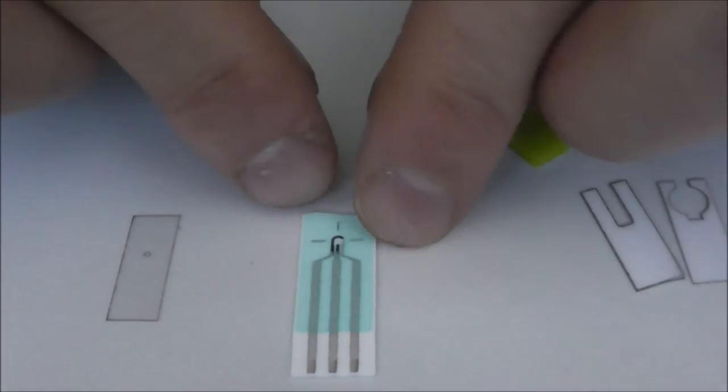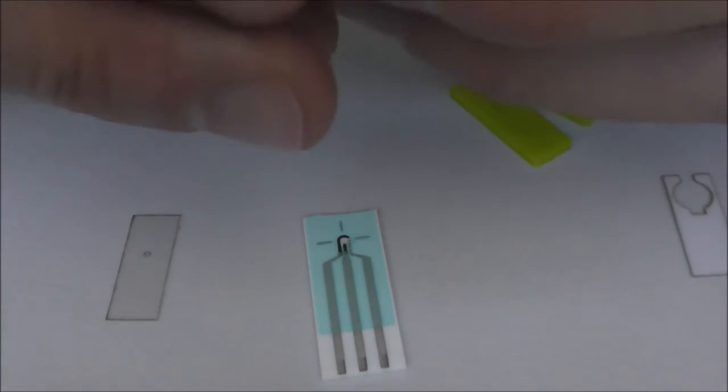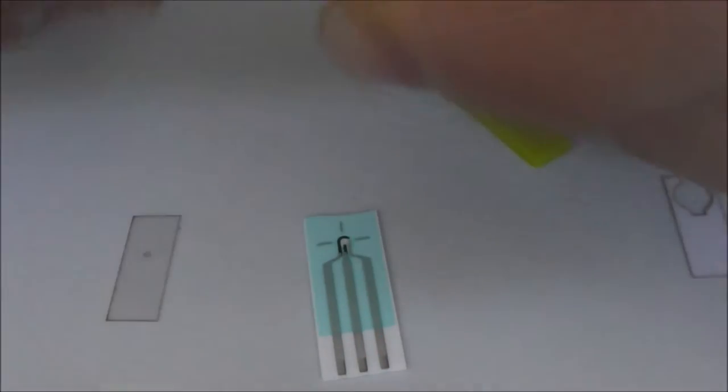Now in order to adhere to the Zimmer and Peacock sensors, we're using adhesive layers.